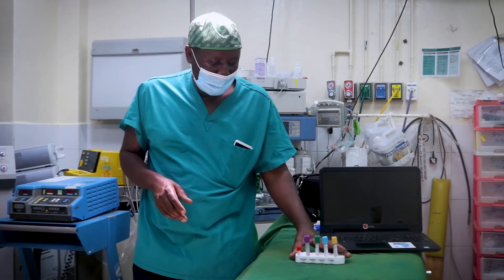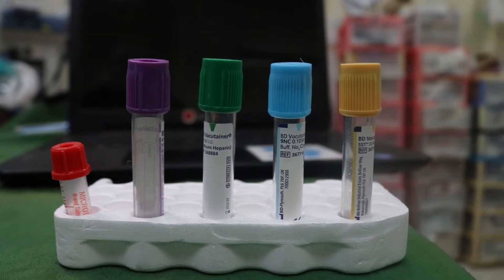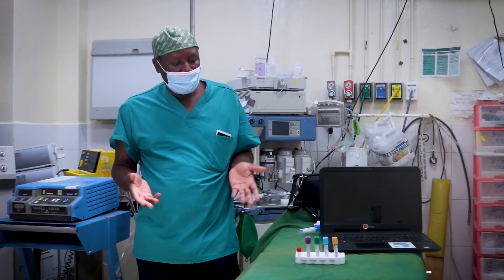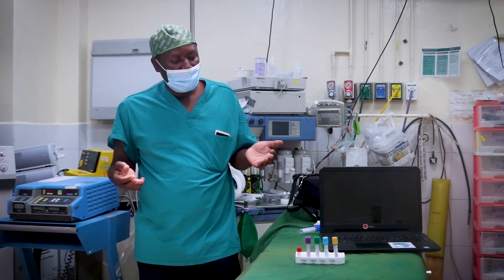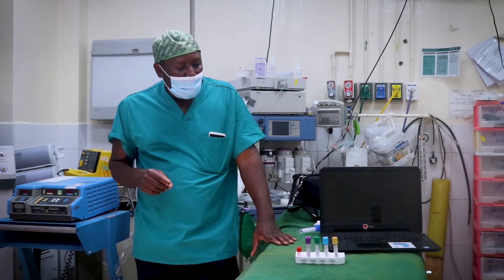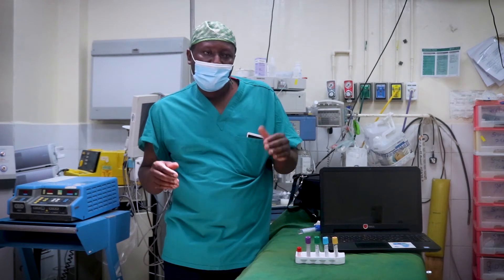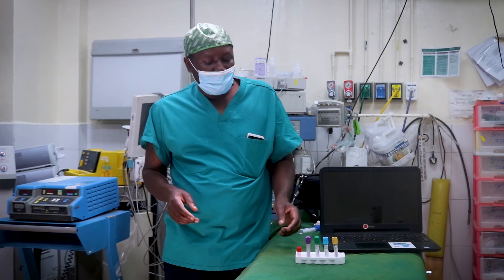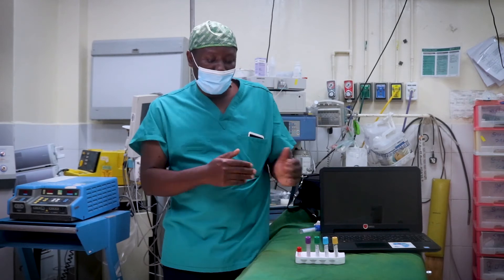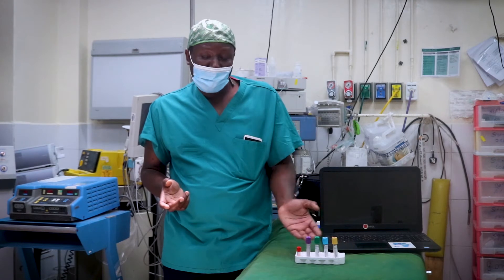To help come up with a diagnosis of the patient, you need to do some tests. We have sample bottles, and these sample bottles are color-coded. For all healthcare providers attending to the patient, we want to give holistic healthcare and a holistic outcome depending on the diagnosis. For us to get the right result, we have to do our sample according to the laid-down guidelines. When blood samples are taken from the patients, we have specimen bottles that are color-coded.